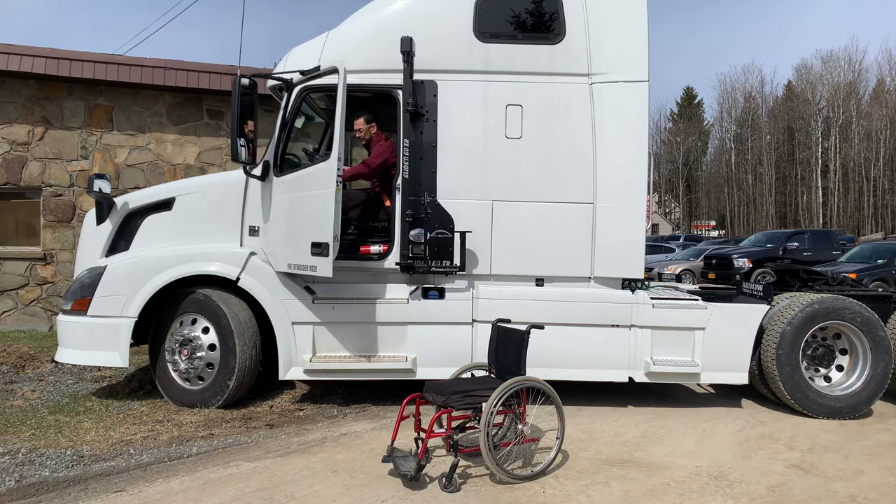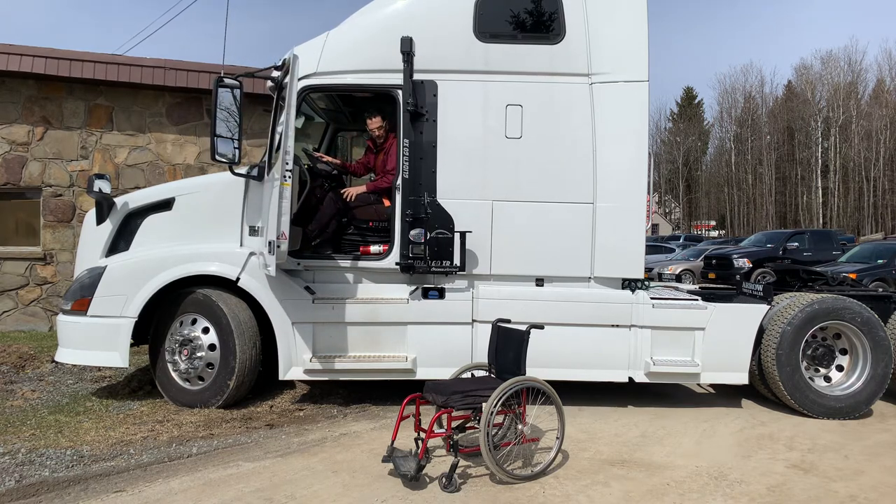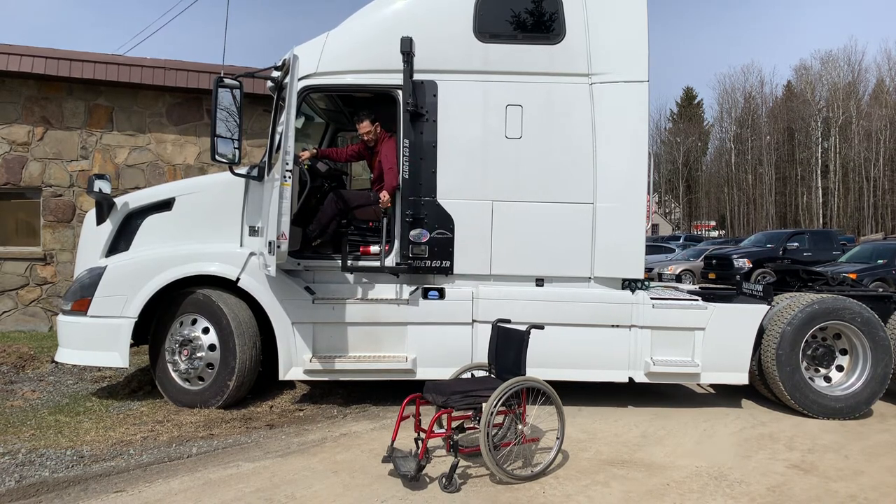So make sure that you watch those videos. There are two ways to do this. One, if you've got long arms like I do, you can simply reach out here — make sure you've got your seat belt on — release the Glide&Go and flip it around in this direction. You can lock it all the way in here, which has got a special hole for that setting right there.